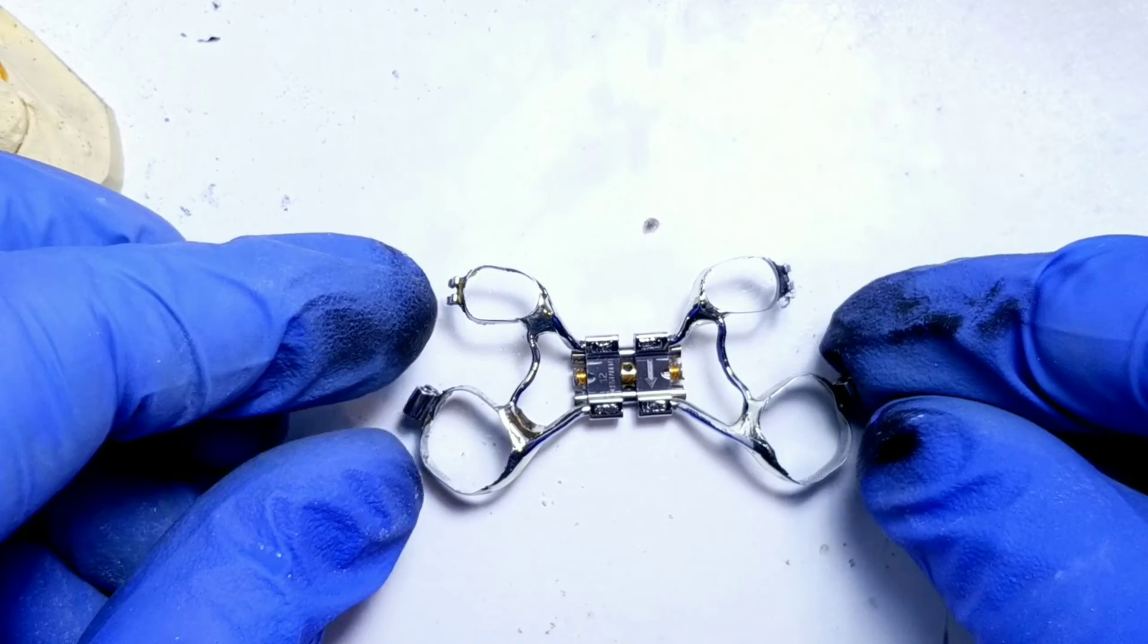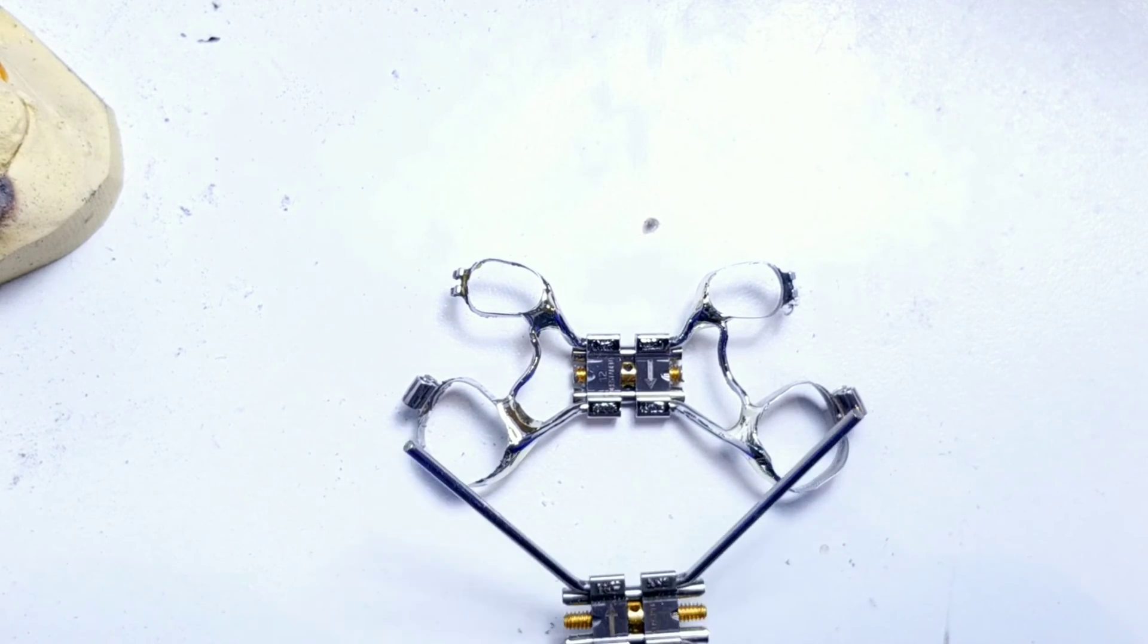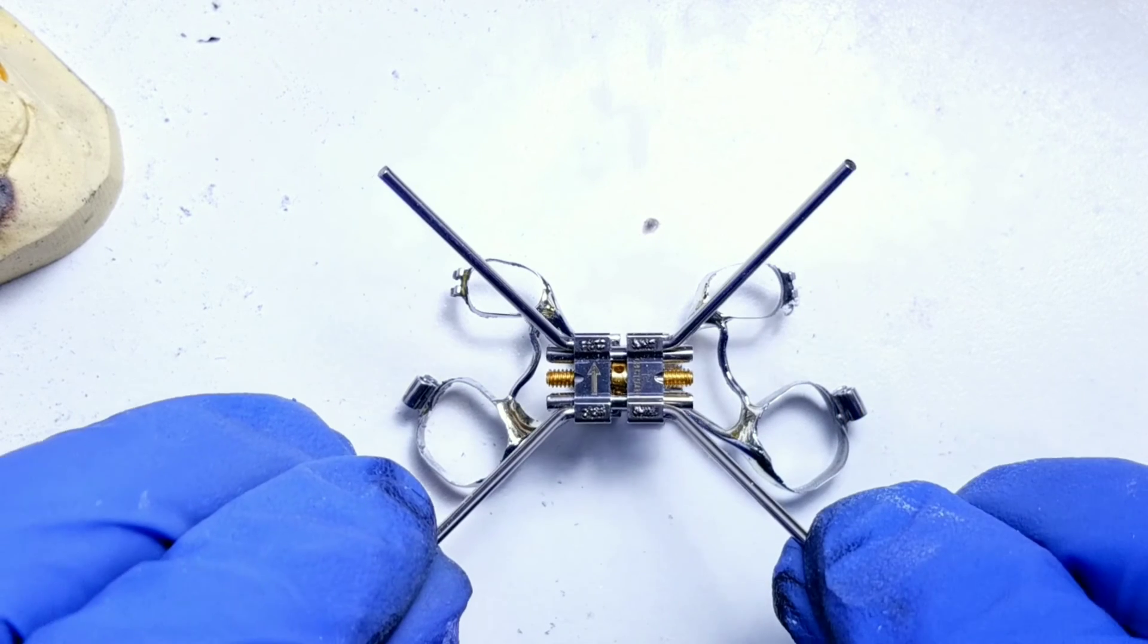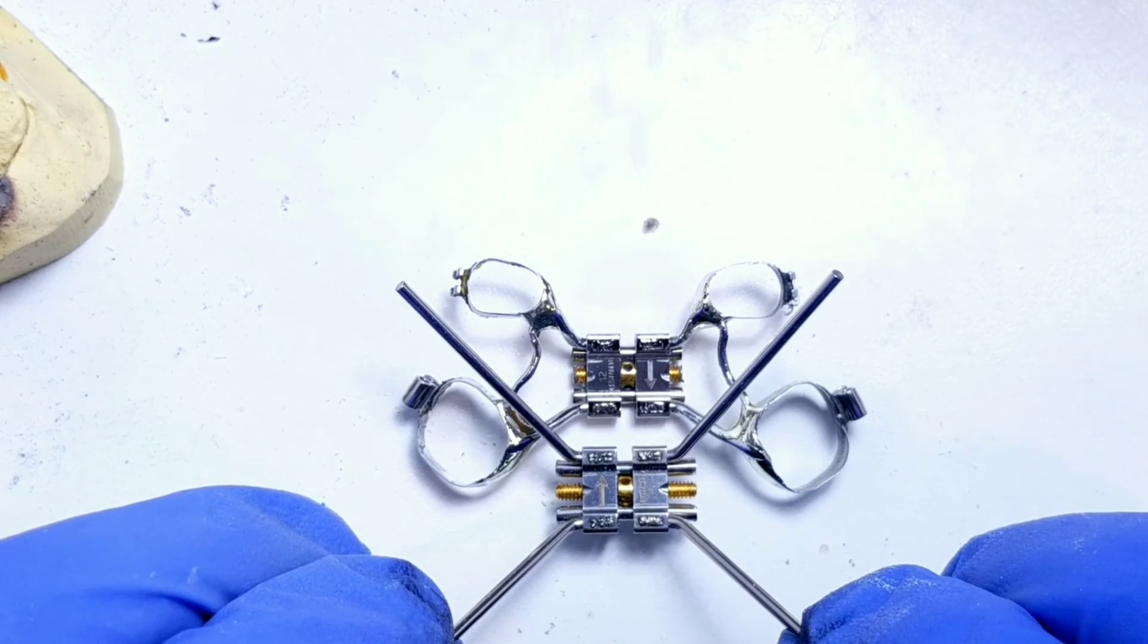Here we have the finished product after just being pumiced and polished. And in this little demonstration, you can see what a 12 millimeter expander looks like and you can see how much I trimmed off it to make this new mini expander.